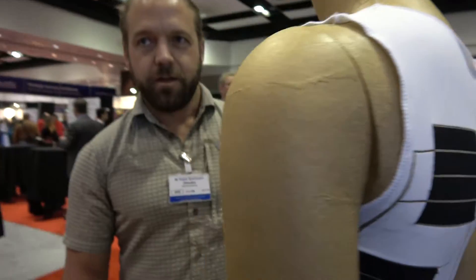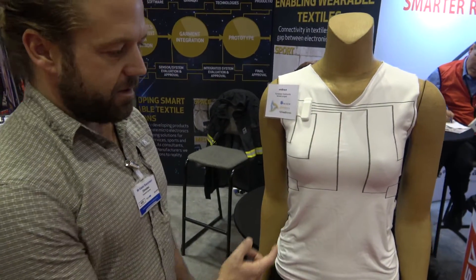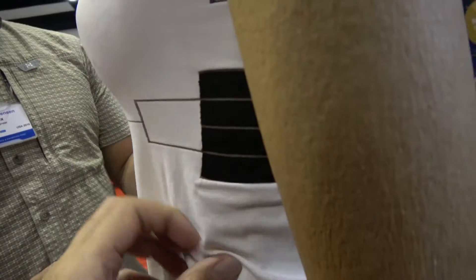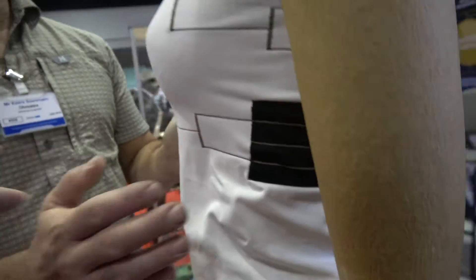So this is for people who have back issues? Yes, scoliosis problems, mostly teenagers and young girls, using the brace and pressure sensors. You can measure if you're holding upright the right way, if you're in the right position, and if you're working against the brace. You can do exercises during the day with the app and see how it's working.